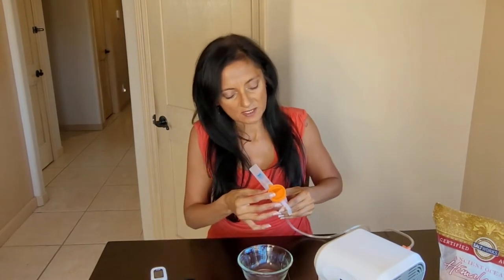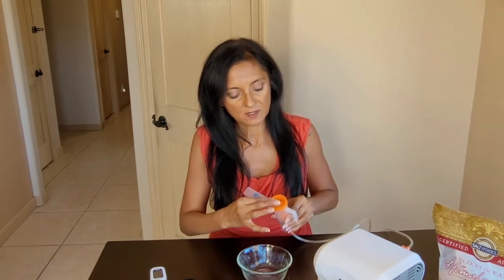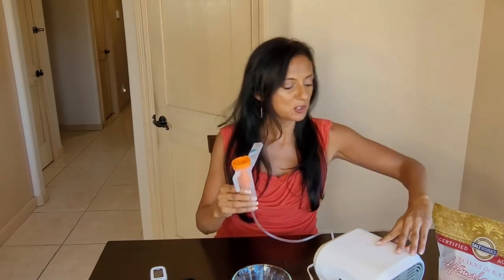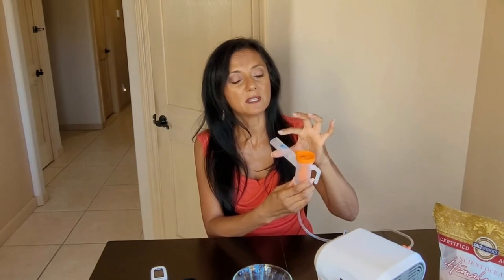I'm going to adjust mine to maybe halfway — there's full steam, halfway, and minimal. Switch on your air compressor and you're going to seal your lips. What I recommend is you put your teeth over the mouthpiece, then your lips over that. As it's on, you're going to do deep breaths in and out very slowly and really feel the air coming in and down.